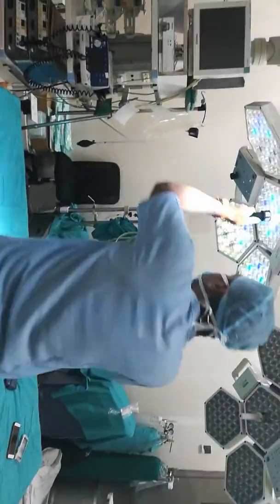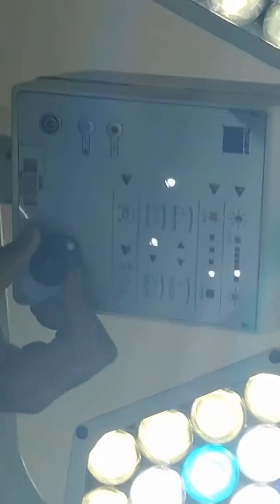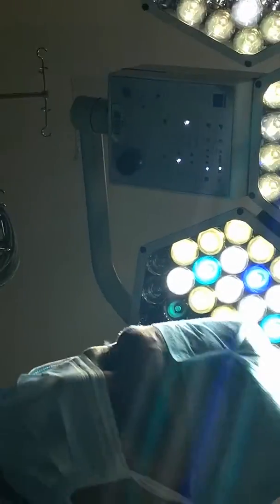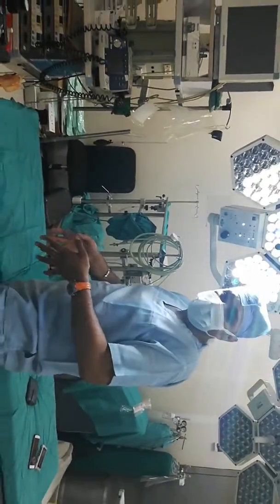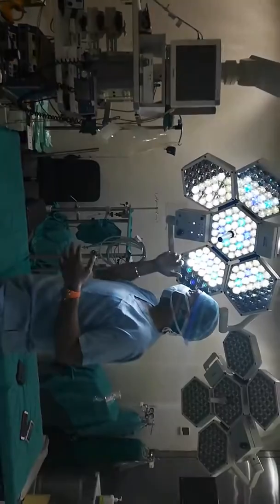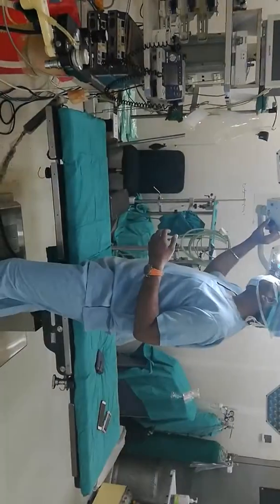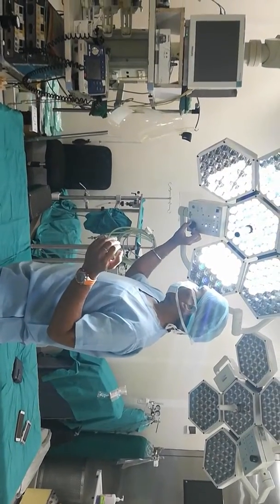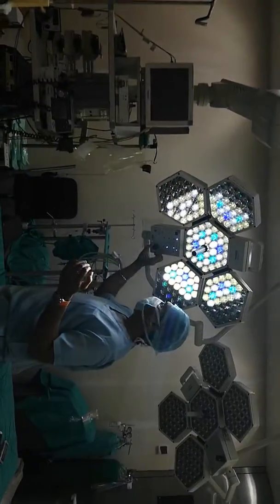There are different modes in it. There is a selection button over here. These are different types — like two surgeons are working or a single surgeon is working. We can also select whether we want to see in depth if an organ is deep inside a body or on the exterior side. Depending on that, the lighting is done. There are settings for intensity, how much lux, and these are the modes.